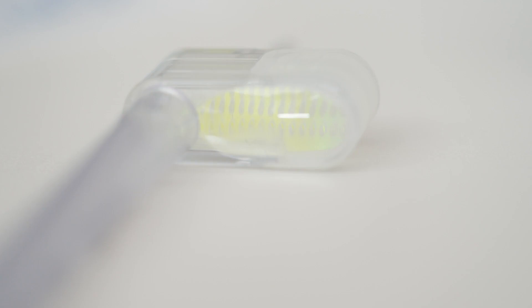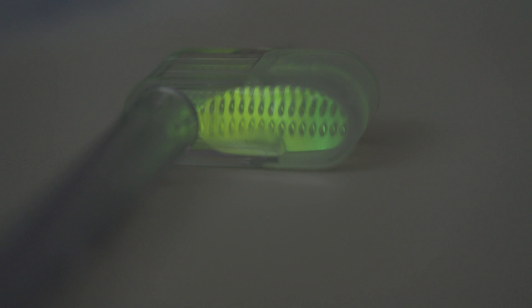In an endoscopy room, sometimes the lighting is a little bit soft, so you need a light source. Specimens can be very small. ProTrap Luma helps you illuminate, magnify, and identify so you can have confidence in retrieving specimens.